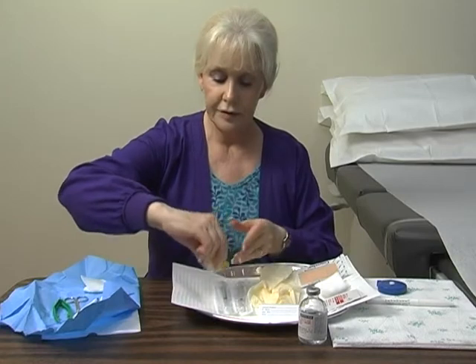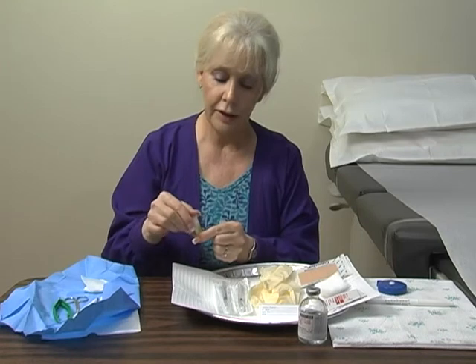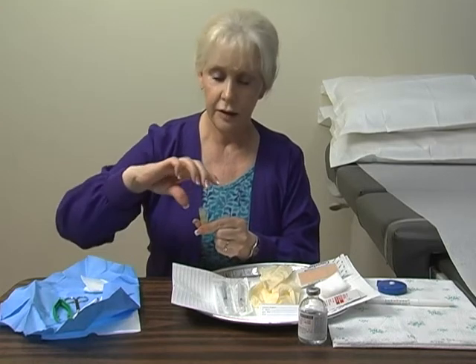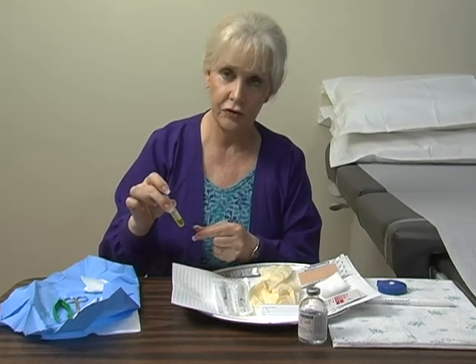Looking at the Zamboni — when you open it up, be very careful, as these tubes are full. They need to be full so that your specimen doesn't ever air dry. Be very careful when you open them and place the specimen inside. It's a screw top, not a press cap, and you don't want to crush your specimen within there and damage it.